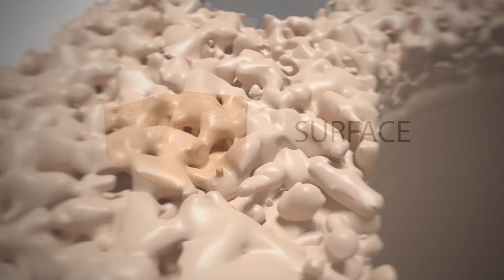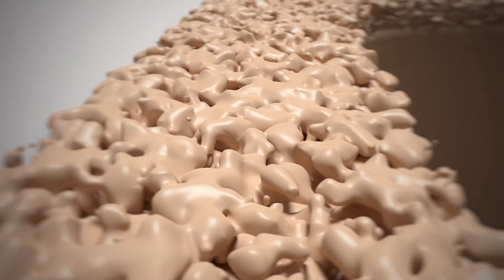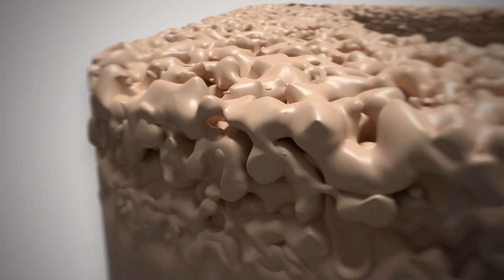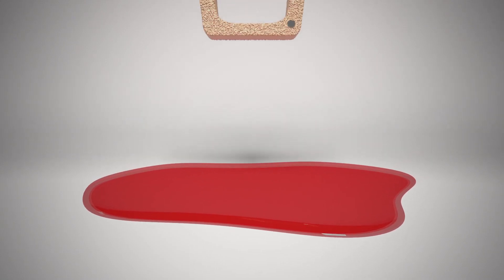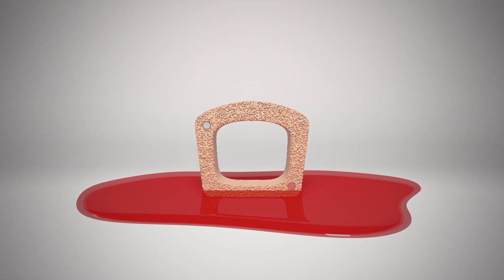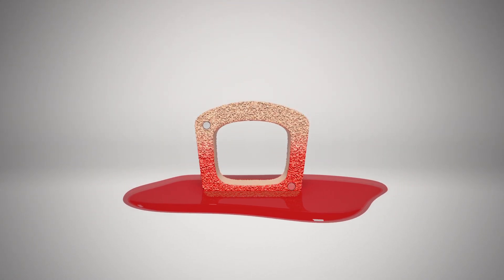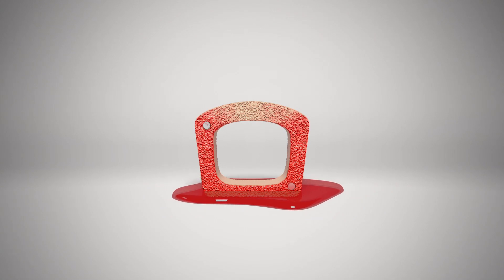The surface technology of porous PEEK implants introduces a unique porous architecture designed to enhance osseointegration and maximize bone-to-implant contact. The increased surface area and wicking ability of the porous surface can improve blood-to-implant contact compared with traditional interbody implants.